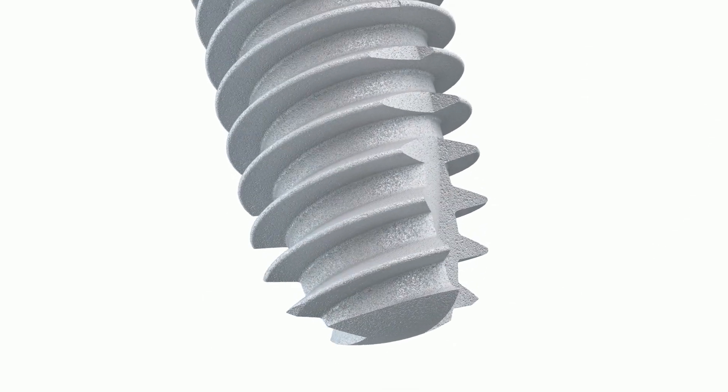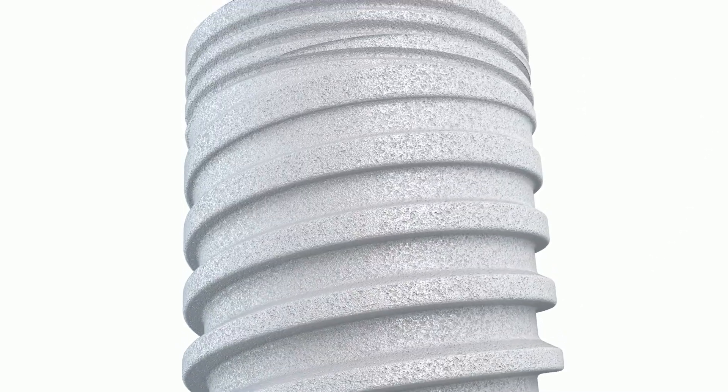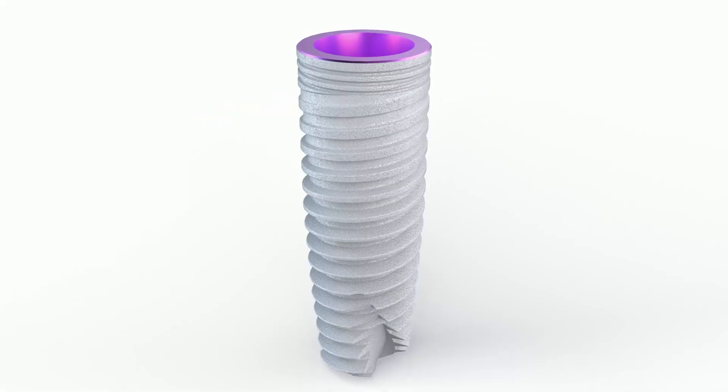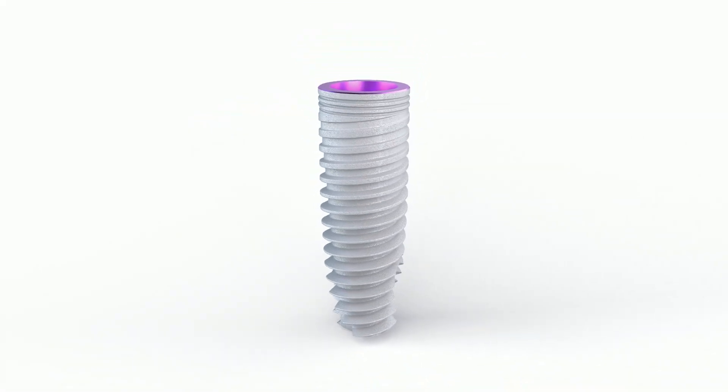MIS-C1 XD Implant is a powerful player in the MIS conical connection family and offers a versatile solution for all clinical indications.